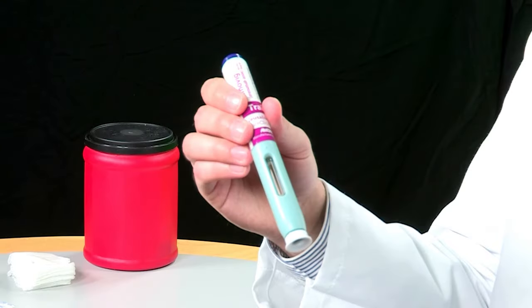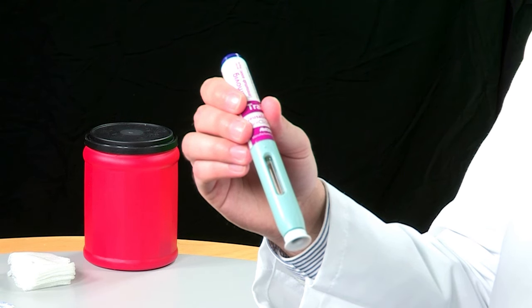As with any medication, keep it in the original container and in an area that is out of the reach of children and pets. Before we discuss how to give yourself an injection of Erenumab, let's take a closer look at the medication.